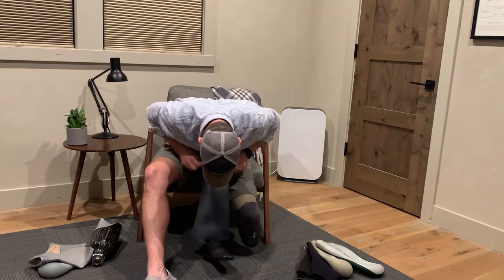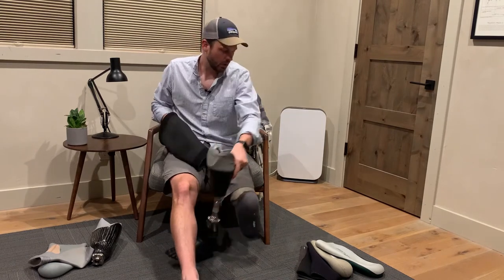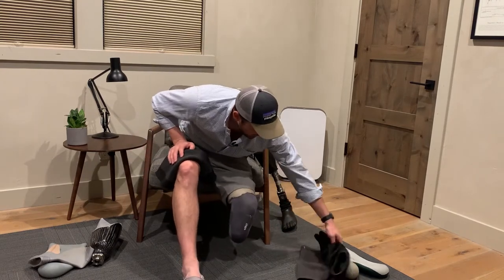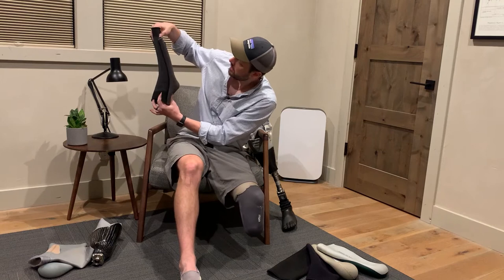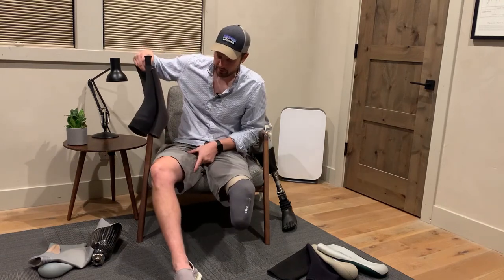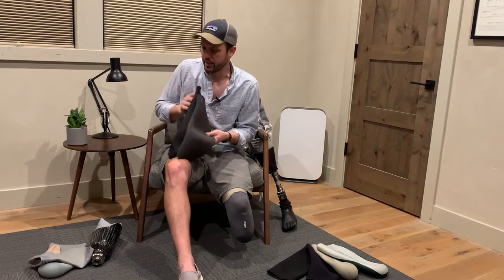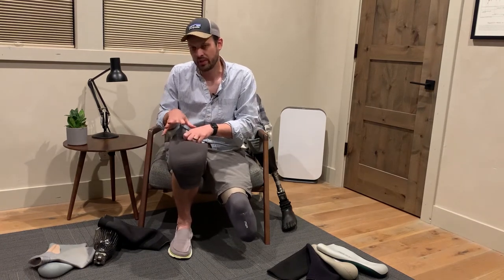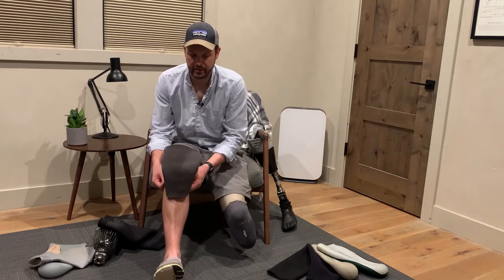This is one of the longer sleeves. You can see it's got about an extra inch and a half to two inches that go up your thigh and give you a better seal because there's more surface area. That means you're less likely that when you sit down a small gap will open — it just happens, it flexes and then a gap opens, releasing the air pressure that you so carefully had when you put it on.